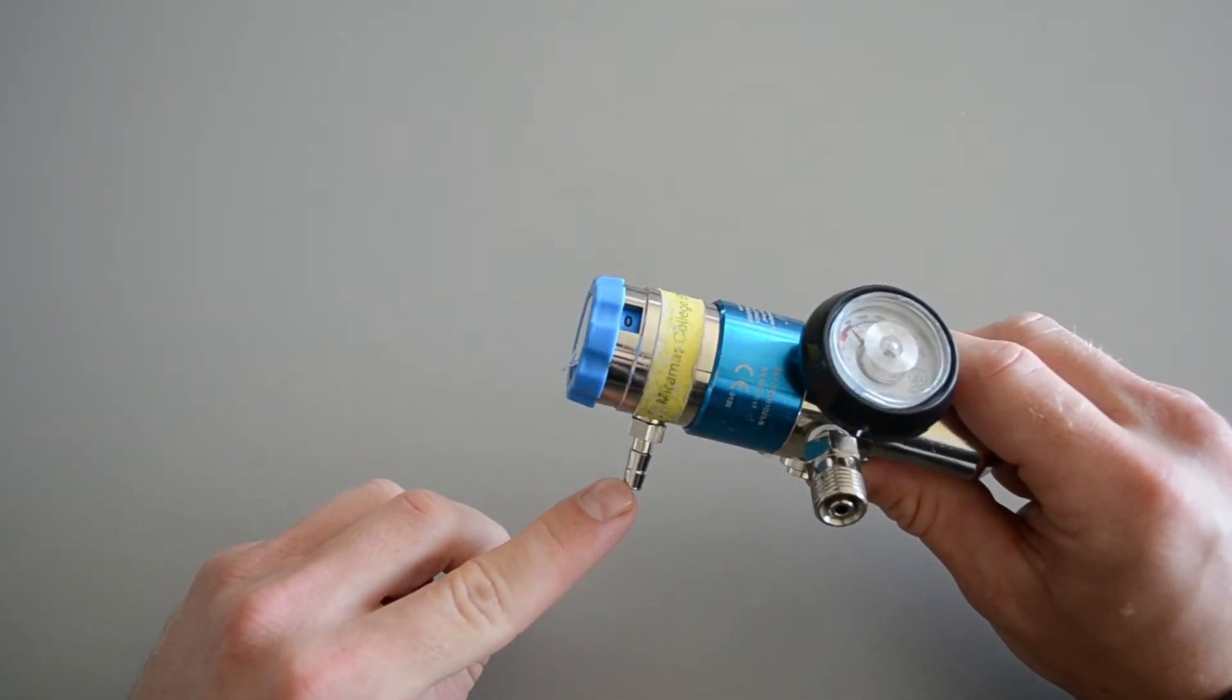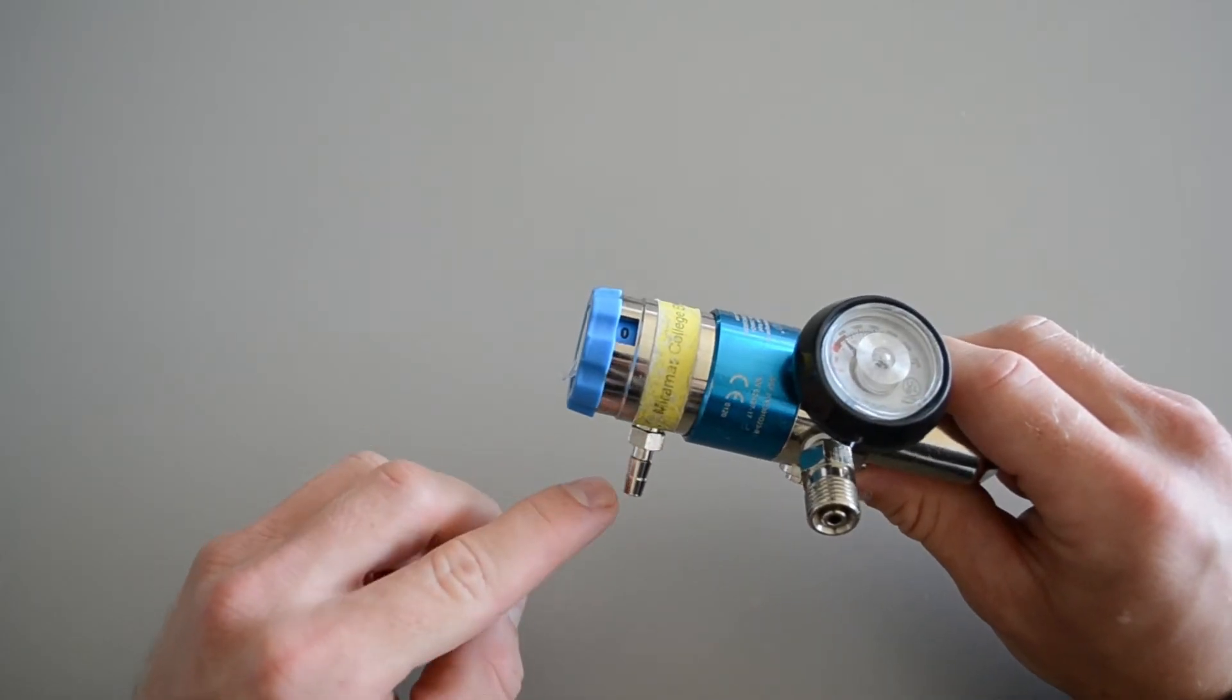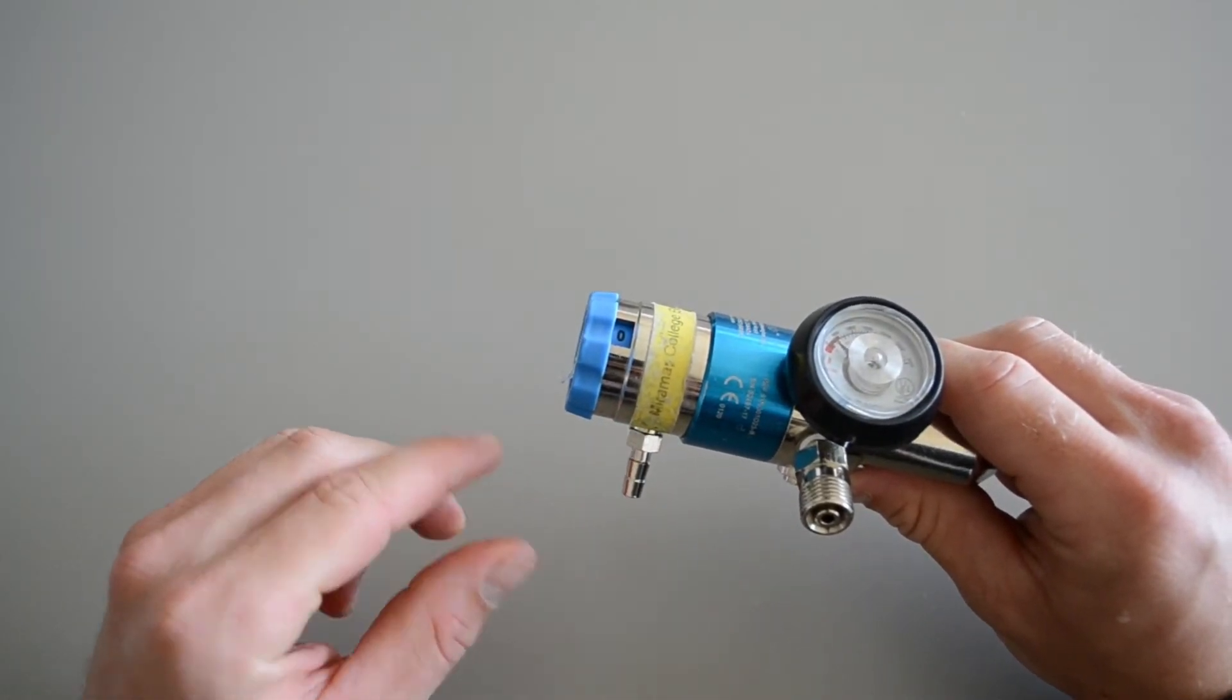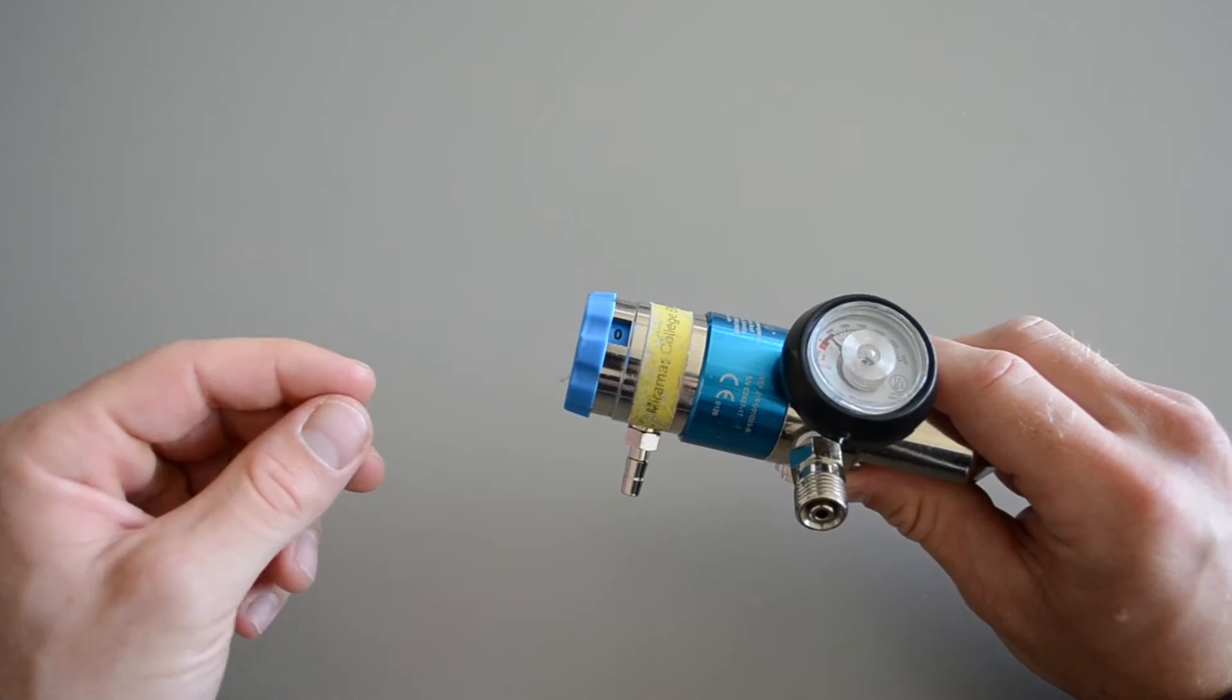This connection right here, this is called the tree, this is where you plug in the end of either the nasal cannula, non-rebreather mask, or the BVM.